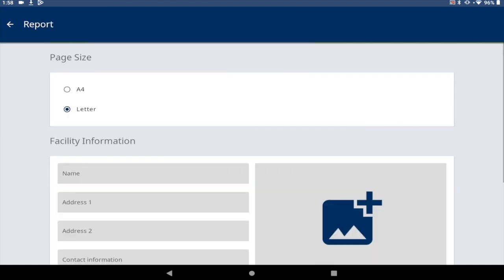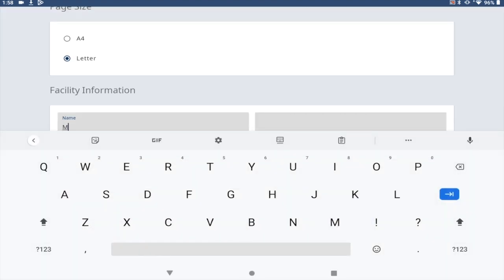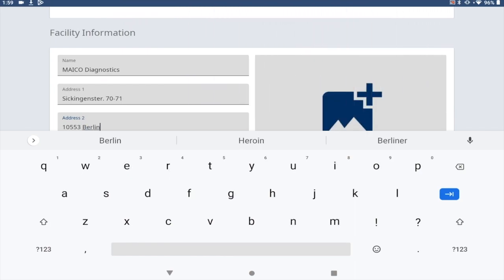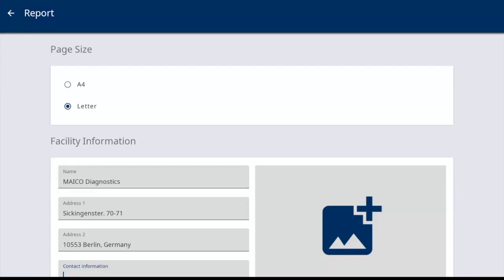Enter the facility information in the fields provided. To add a logo, there are three options to choose from. All will be reviewed for you to select your preferred method.